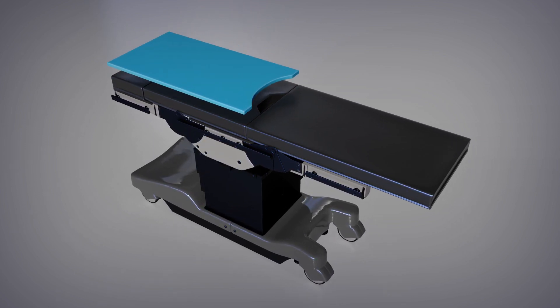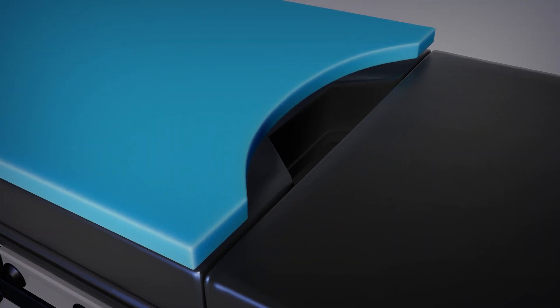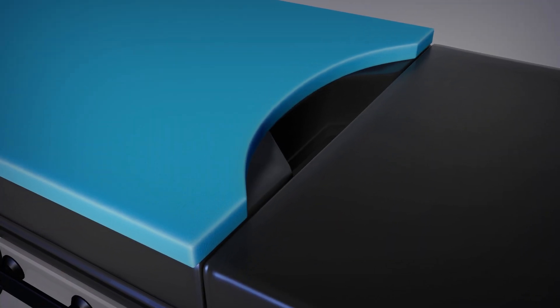When placing the PrimePad on the OR mattress, align the PrimePad's perineal cutout with the perineal cutout of the OR mattress.